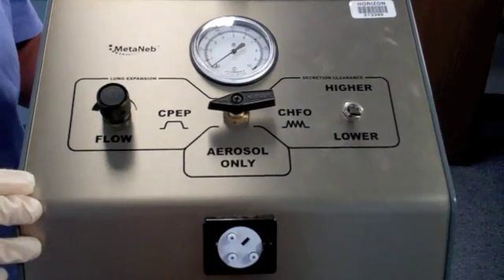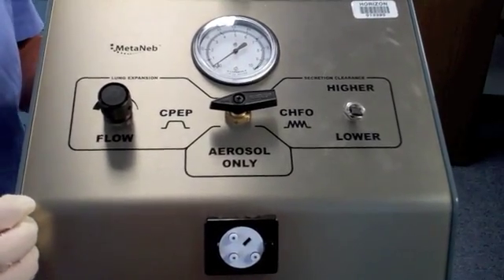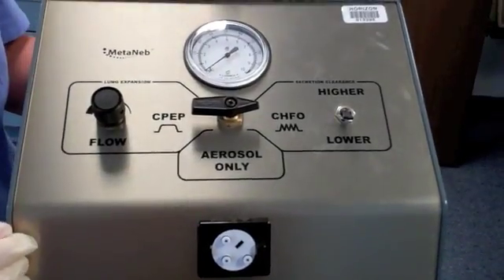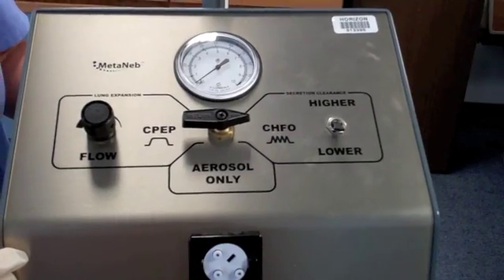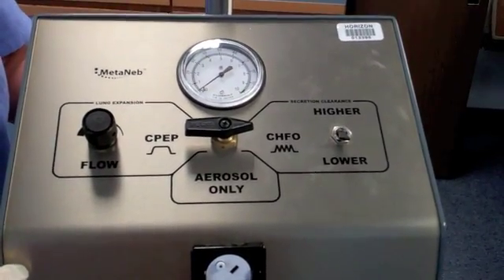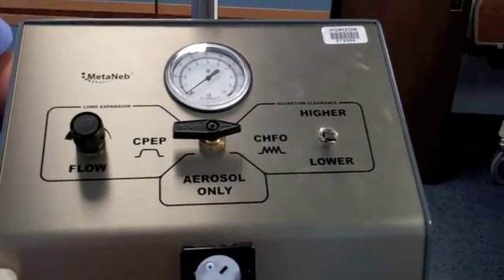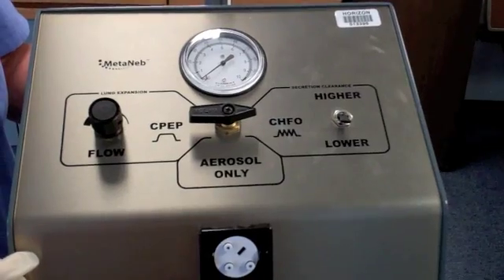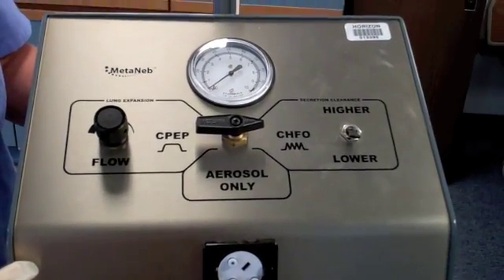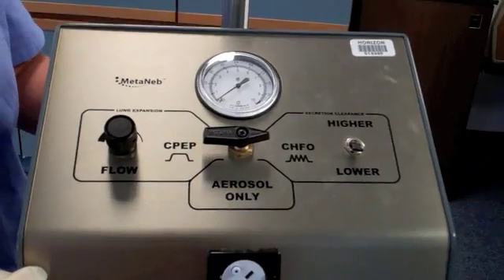It does this by producing a consistent set airway pressure that helps in lung expansion. The respiratory therapist can increase or decrease the amount of airway pressure by adjusting the dial on the left side. The third mode, with the arrow pointing to the right, is the CHFO mode, or continuous high-frequency oscillation. The CHFO portion is there to help enhance normal mucus clearance and resolve patchy atelectasis. This mode uses high-frequency air during both inspiration and expiration to form a pressure gradient to the small airways where secretions may be tracked.